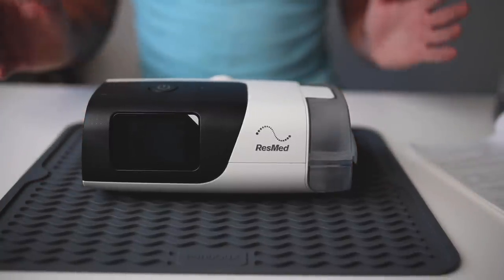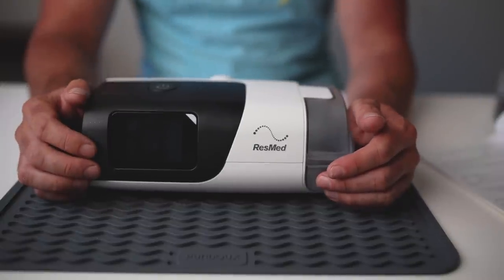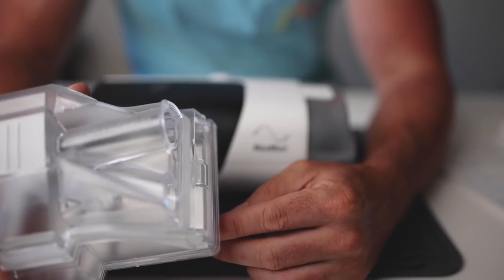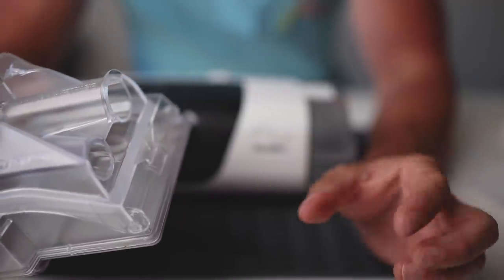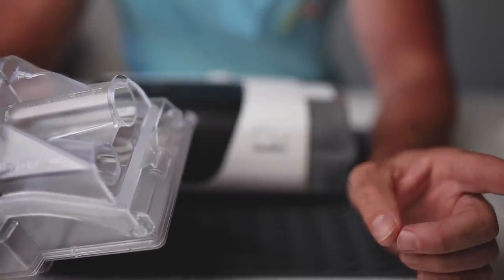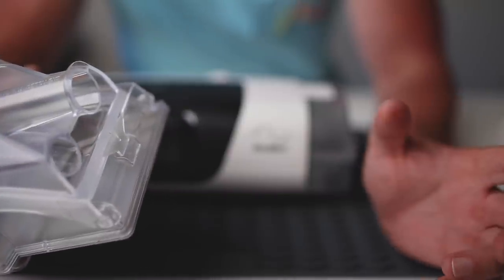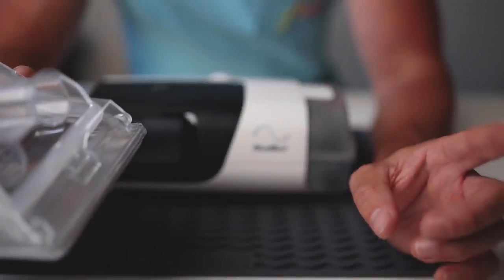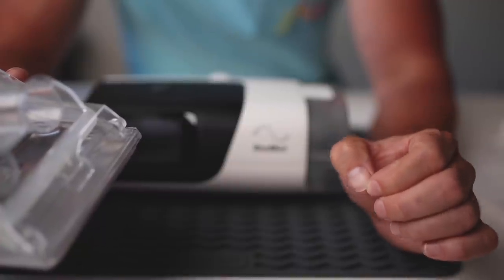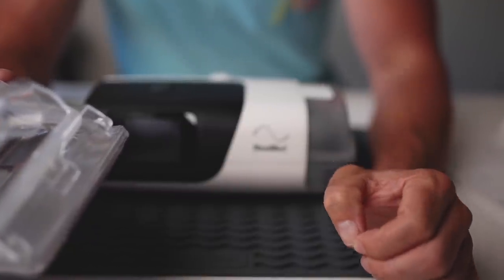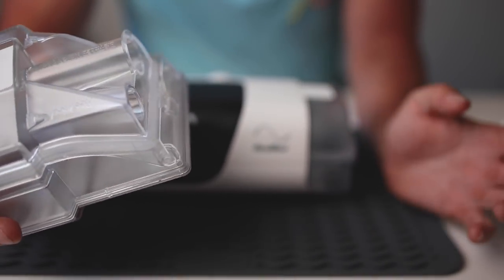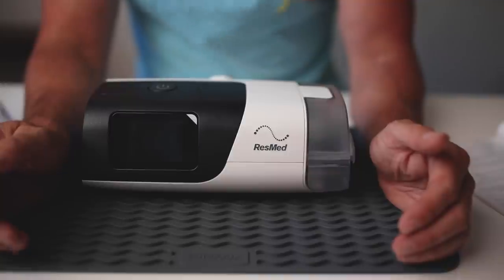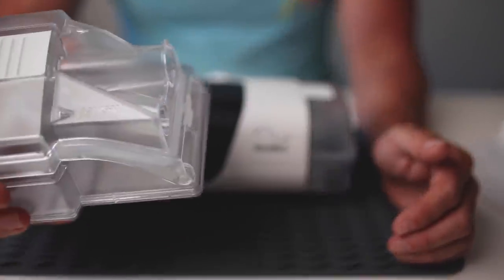Now I know a lot of you guys go and get these sort of parts from Amazon because you can pick them up at a really cheap price. CPAP gear is going to be going up in price this year. I've just received some information from Philips, they're jacking up their prices 10%, ResMed will follow. Your gear's going up, it's unavoidable, inflation's a bitch. But I have heard some whispers the manufacturers are really going hard and trying to put the brakes on people selling stuff on Amazon. So if you're getting a few of these cheap ones, you might want to pick up a few extras.